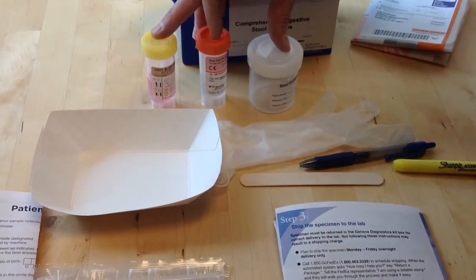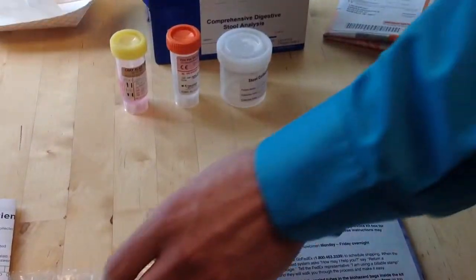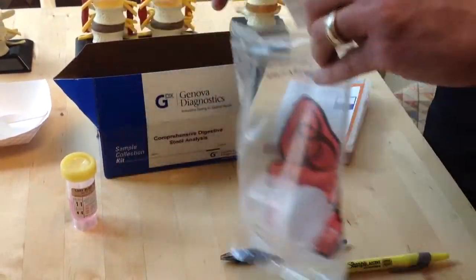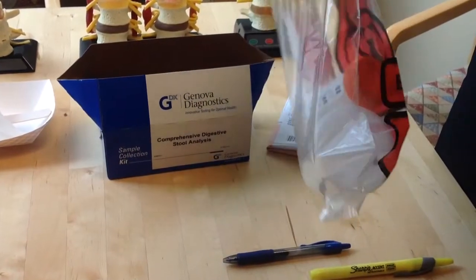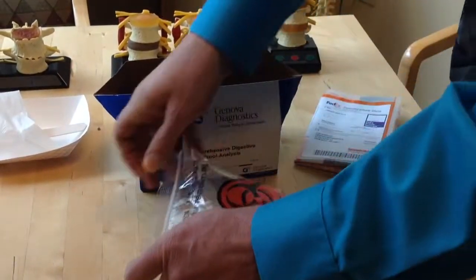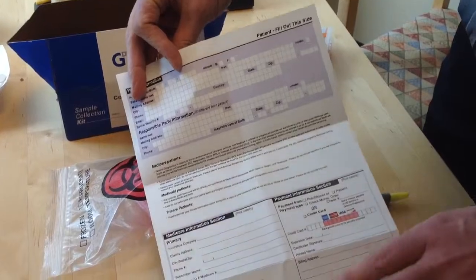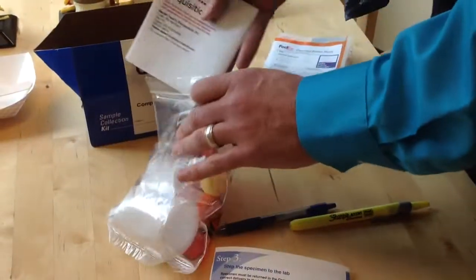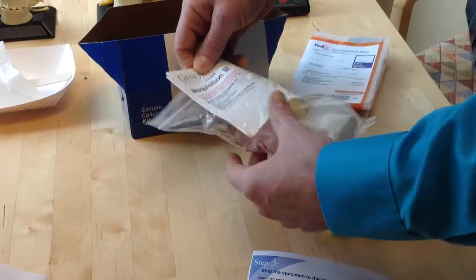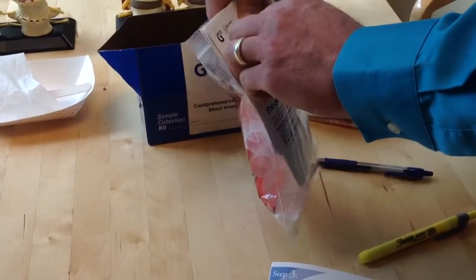So once the tubes are all filled, you obviously discard the stool and the spatula and the glove. Then the tubes are going to go into the biohazard bag. Make sure they're securely capped. Put them in the biohazard bag and seal it. Okay, make sure that the little white absorbent cloth is in there as well. Then you take your requisition form, make sure that it's completed and that the payment is completed, or if a check is enclosed. And ideally you want that to go in the little outside slot of the biohazard bag as well. Okay? You also want to make sure you include your completed patient questionnaire. You can put that in the same slot, or you can just put it in the box.